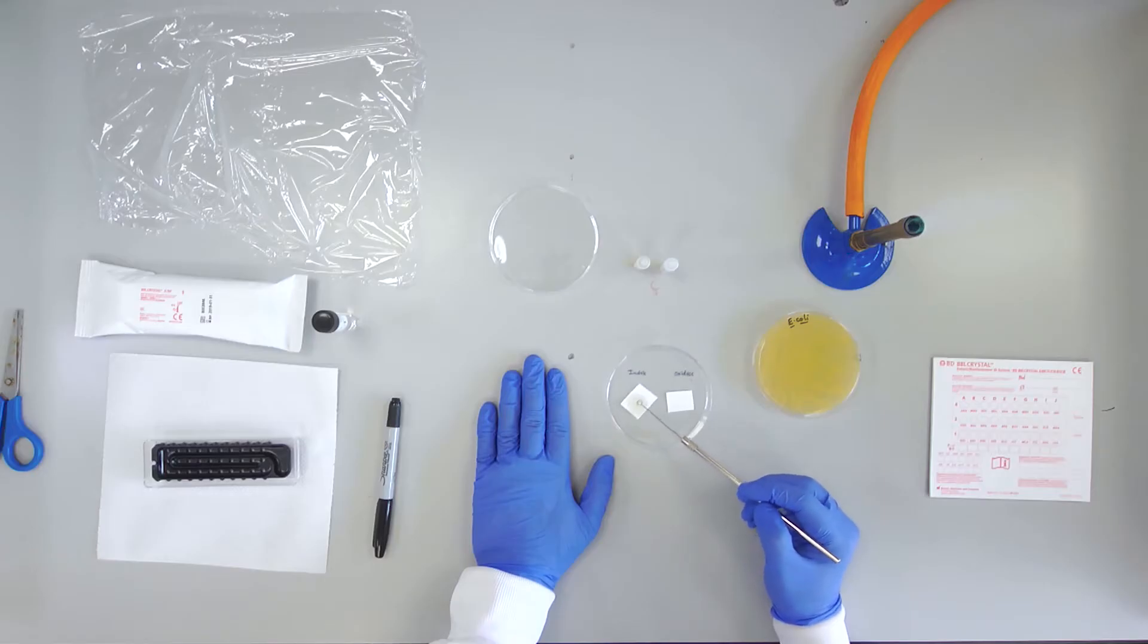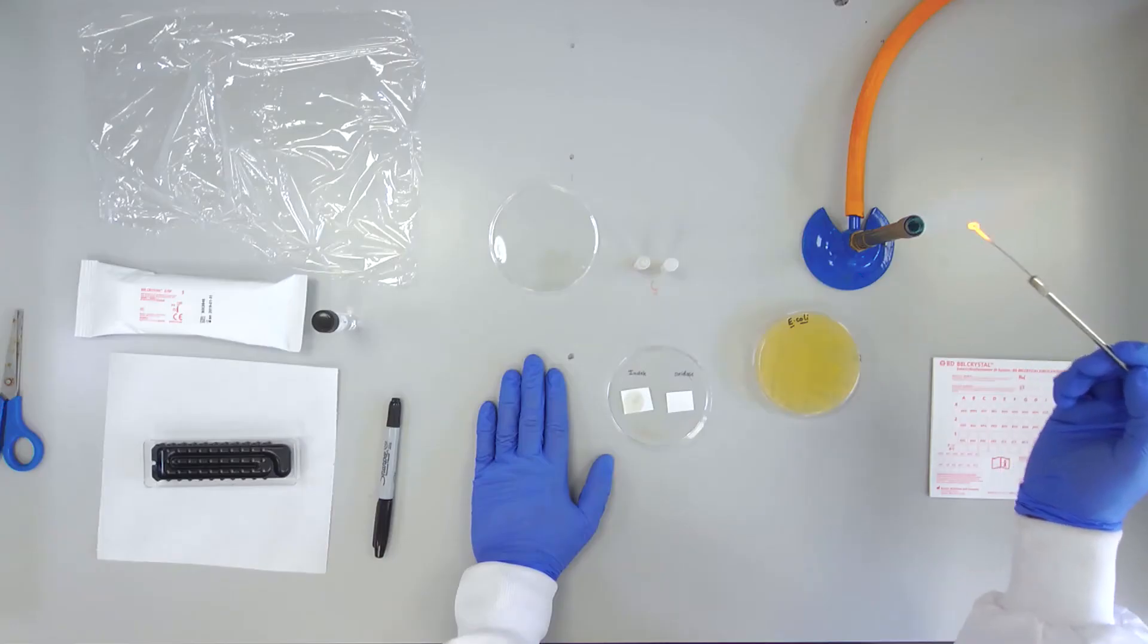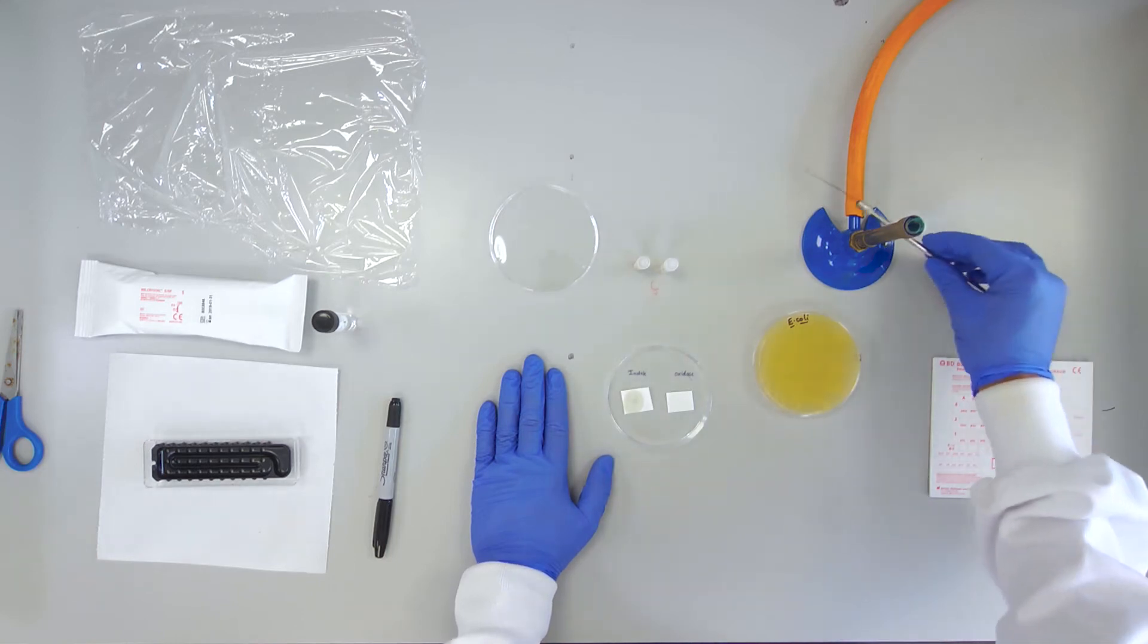If a blue green colour develops within one minute then the culture is Indole positive. No colour change will be seen if the culture is Indole negative.